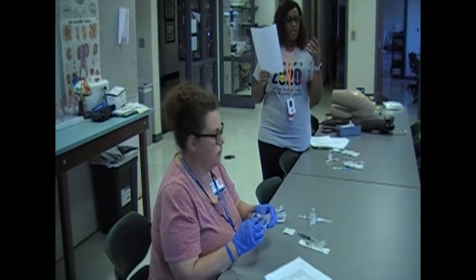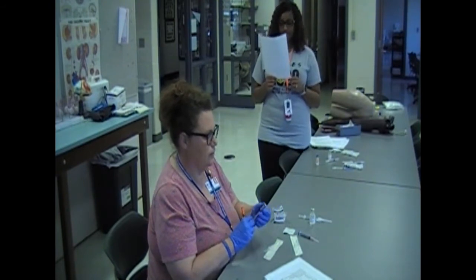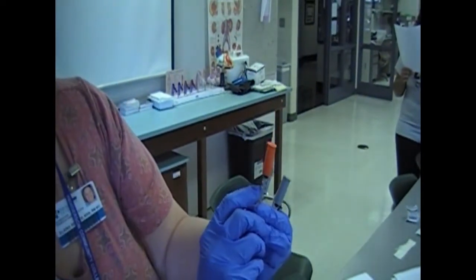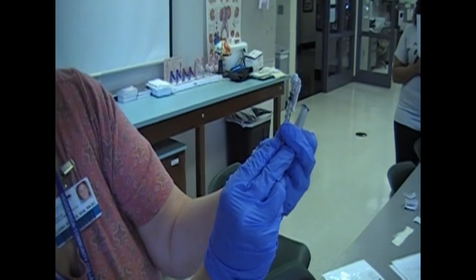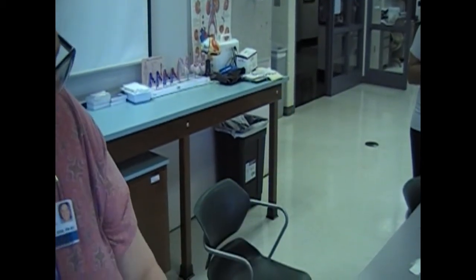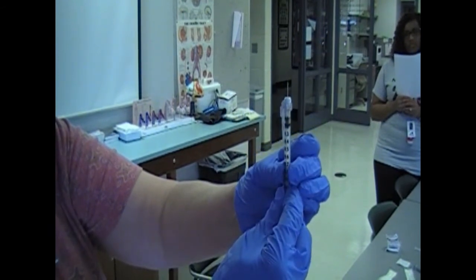Again, get creative. I think this vial only holds 10 mLs, and that should be enough to get all 3 medications drawn up. Let me show them these syringes. Can they see these real close? So when you're drawing up your units, you want to make sure, if I want 15 units, that plunger's right at 15. This will swivel around so you can look at it. And this one, your TB syringe, is in 0.1, 0.2 mLs. Same thing, top of the syringe needs to be at your line.